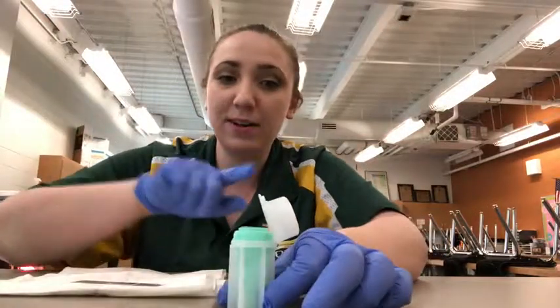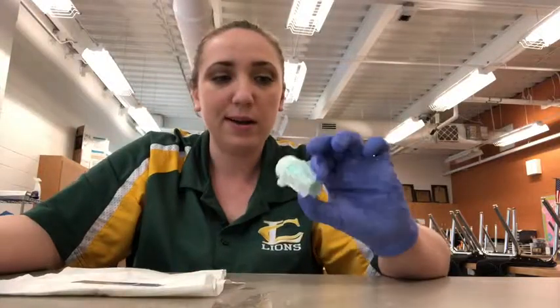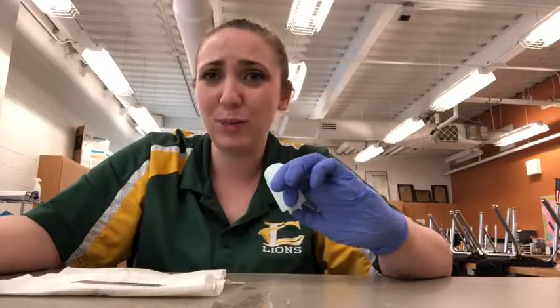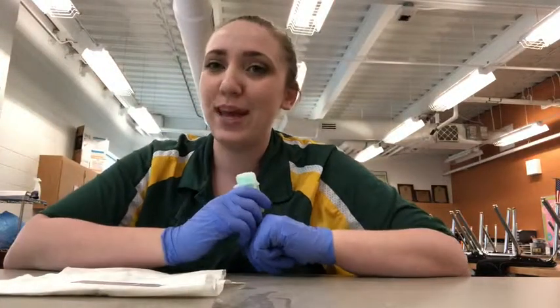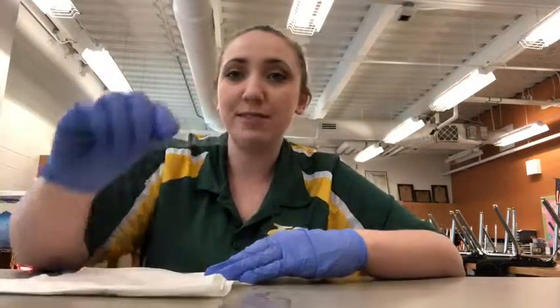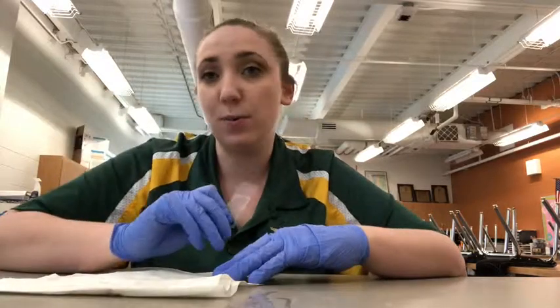And the great thing with the fecalyzer is once we're done here, we just snap that back on and we can toss it out. Usually it's a little bit messier, but for the sake of demonstrating, this is how you use a fecalyzer, and you have a lovely sample that you can now look for parasites.